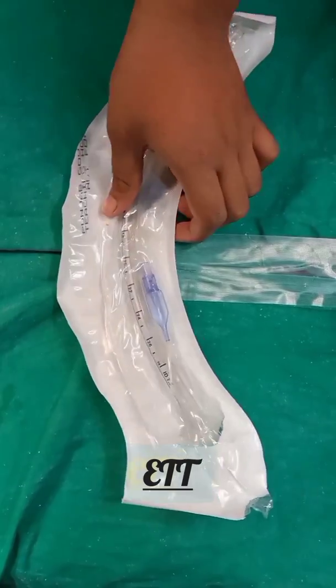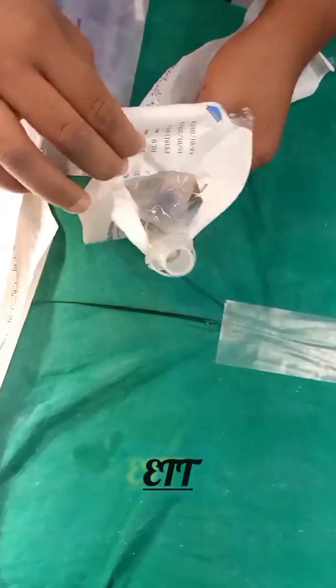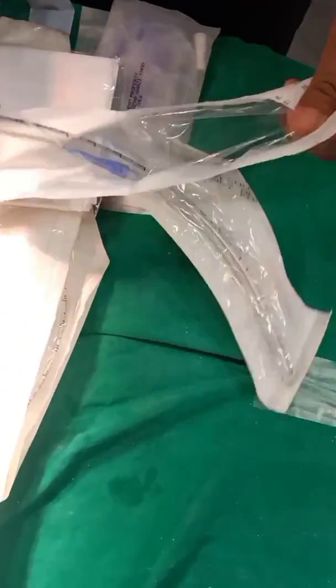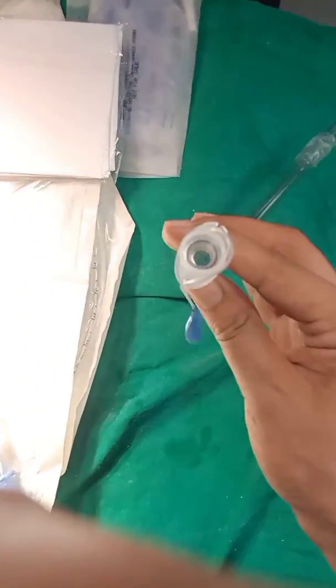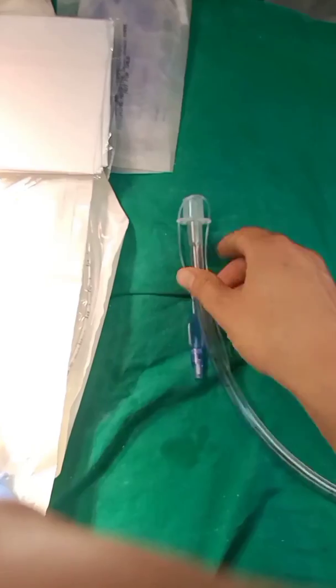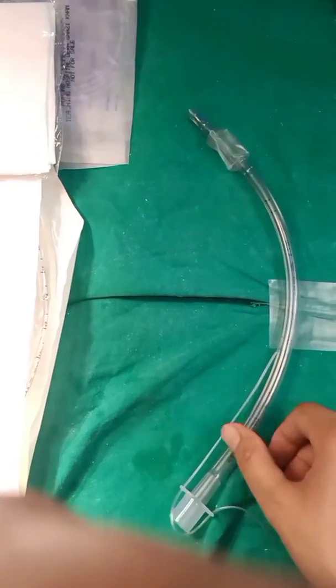Now you are watching the endotracheal tube. It is a cuffed endotracheal tube used for resuscitation, ventilation, to secure the airway in deep coma, and for deep suctioning. It comes in different sizes. However, it can cause tracheal stenosis, tracheobroncial fistula, and vocal cord injury. Wrong placement in the esophagus is also a possible complication.